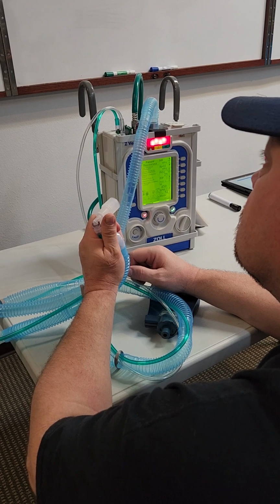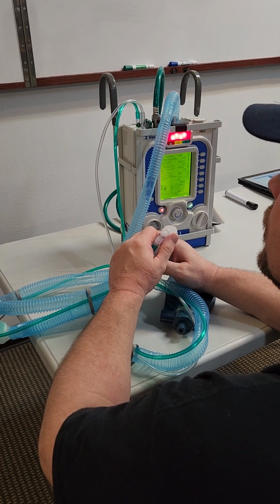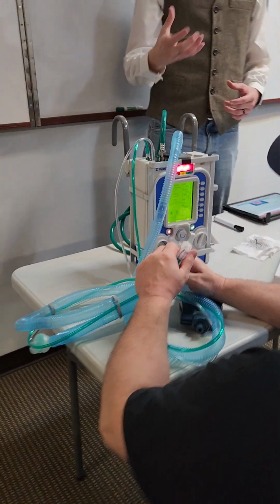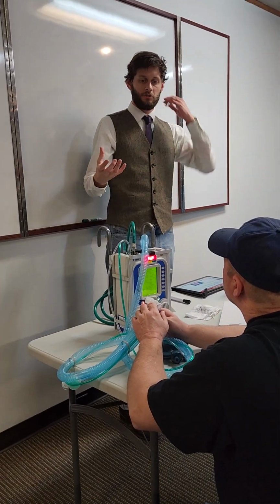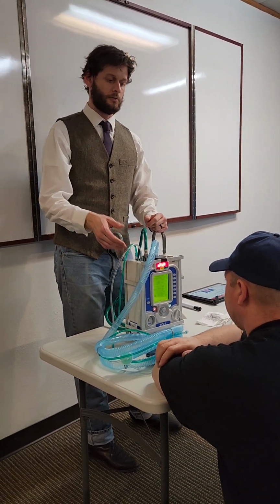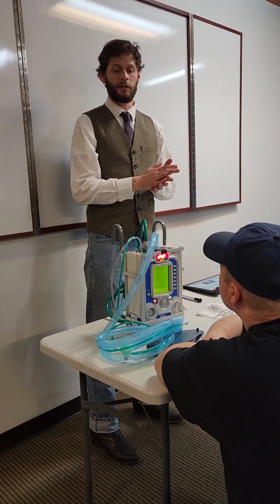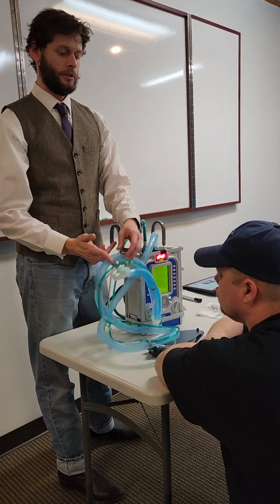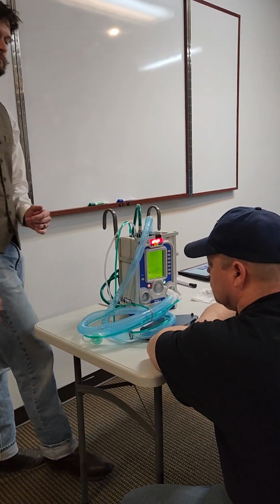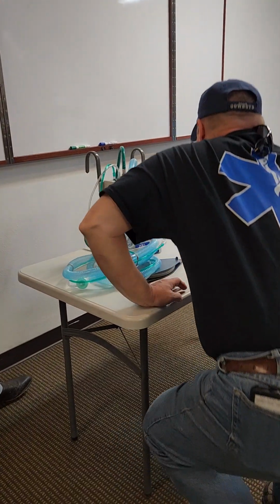Yep. So the reason for that is, you have to understand why circuit check is what it is. The other one told you, hey, your circuit's good. This one's saying, if there's no patient, it's gonna tell you there's no patient. Okay, so that lets you know that the proximal line exhalation valve's working. And then when you cap it, it's gonna say, hey, if there's something obstructing, then yeah, it's obstructed. Because if this was cut right here, when you cap that end, it's not gonna give you that higher pressure. Right. So pressure is gonna come off the side. Okay. That's all it is.